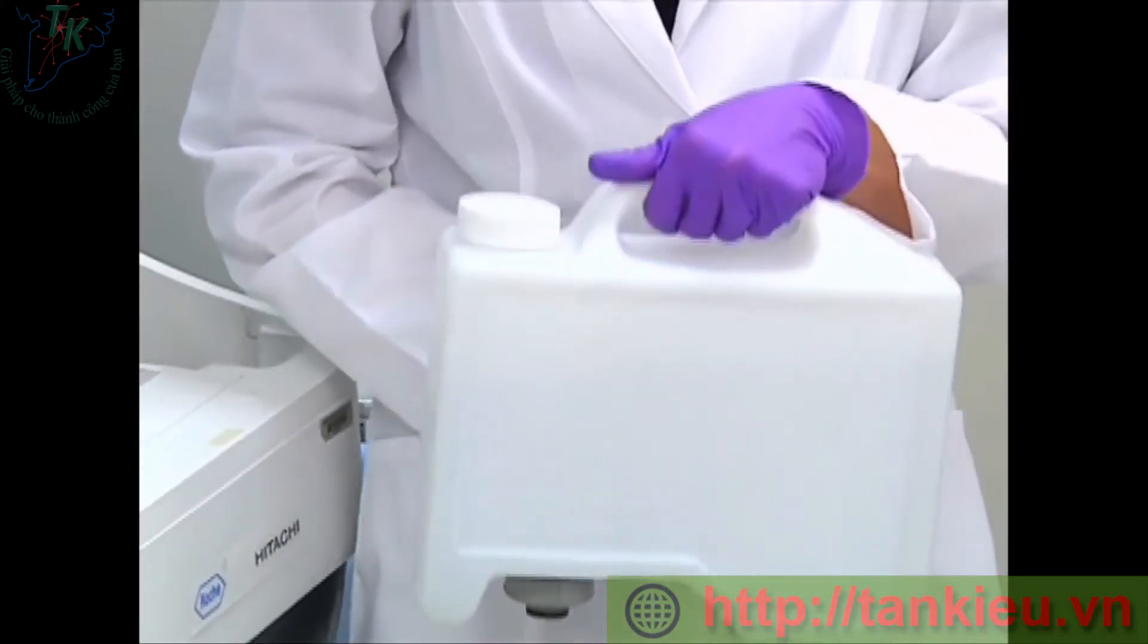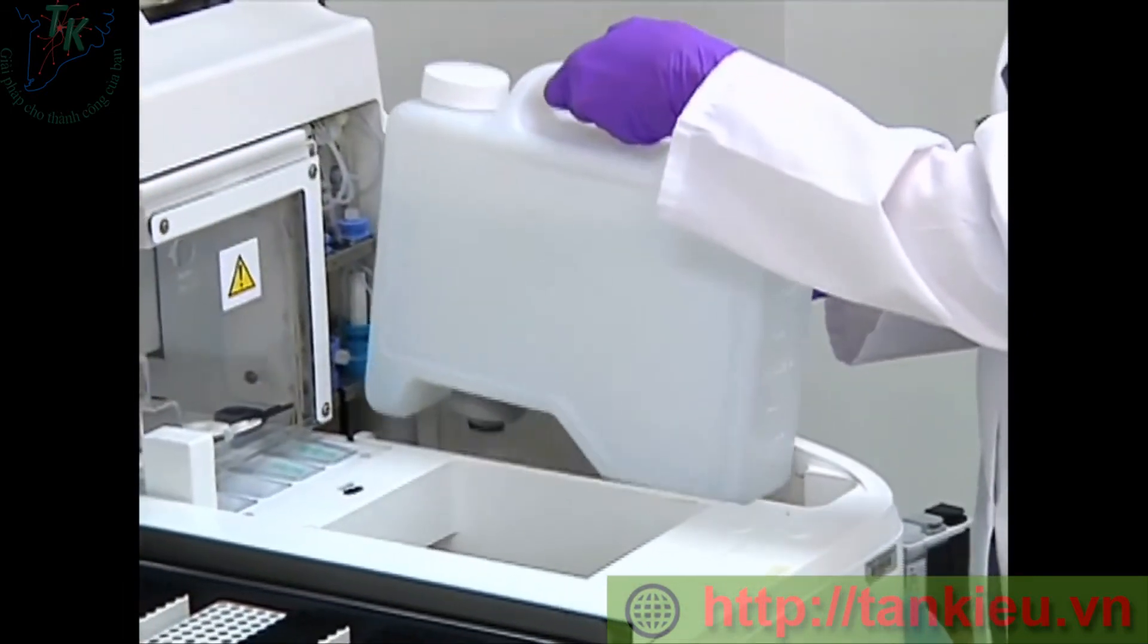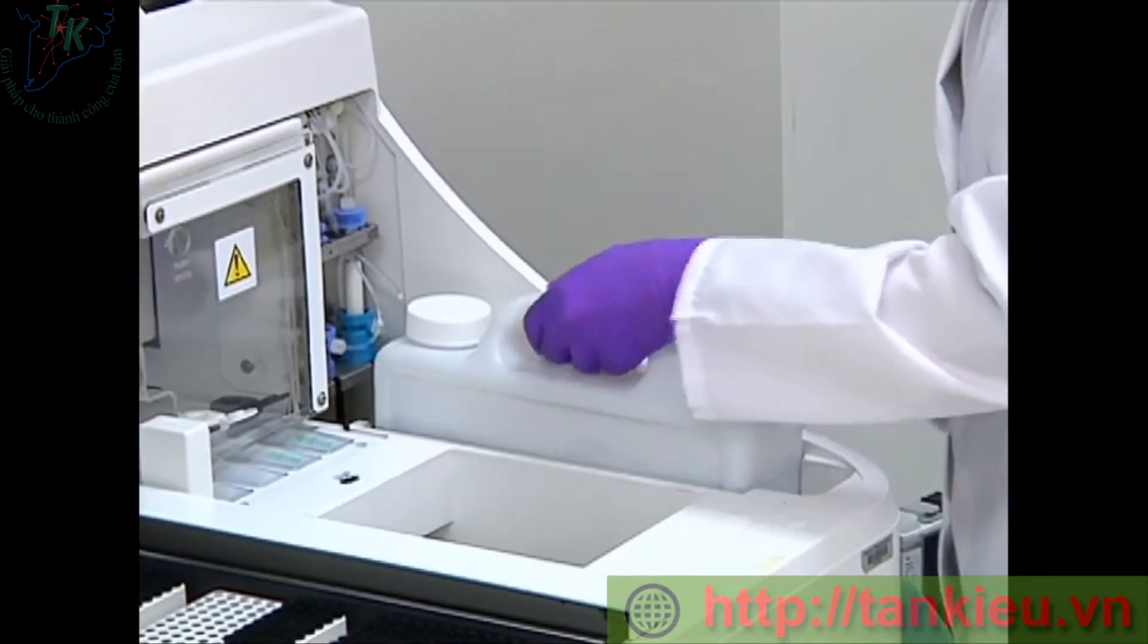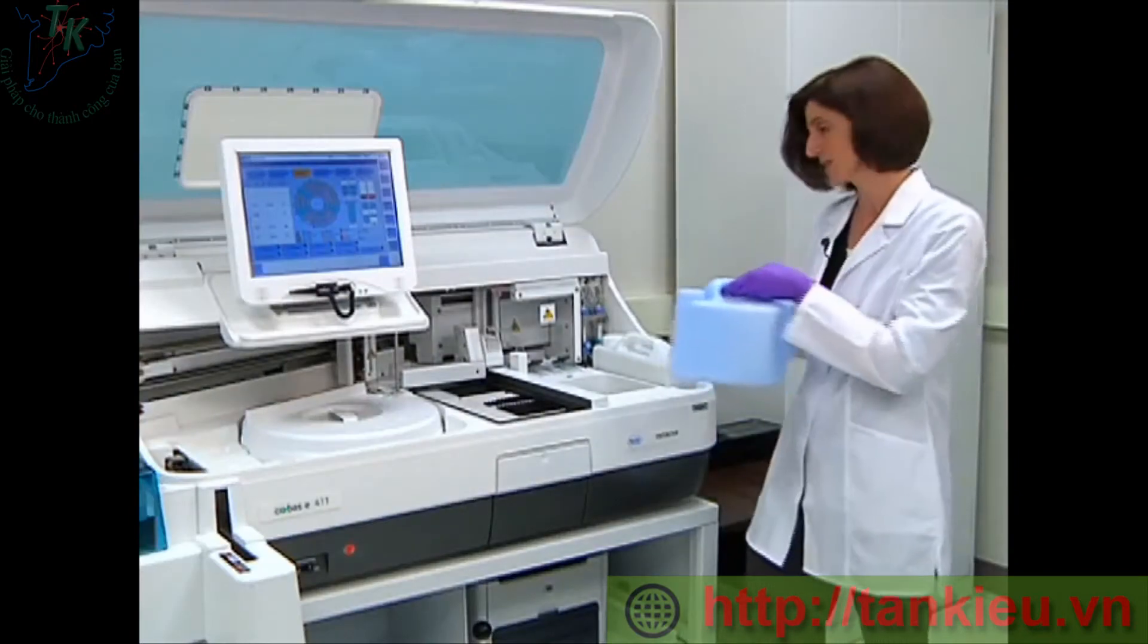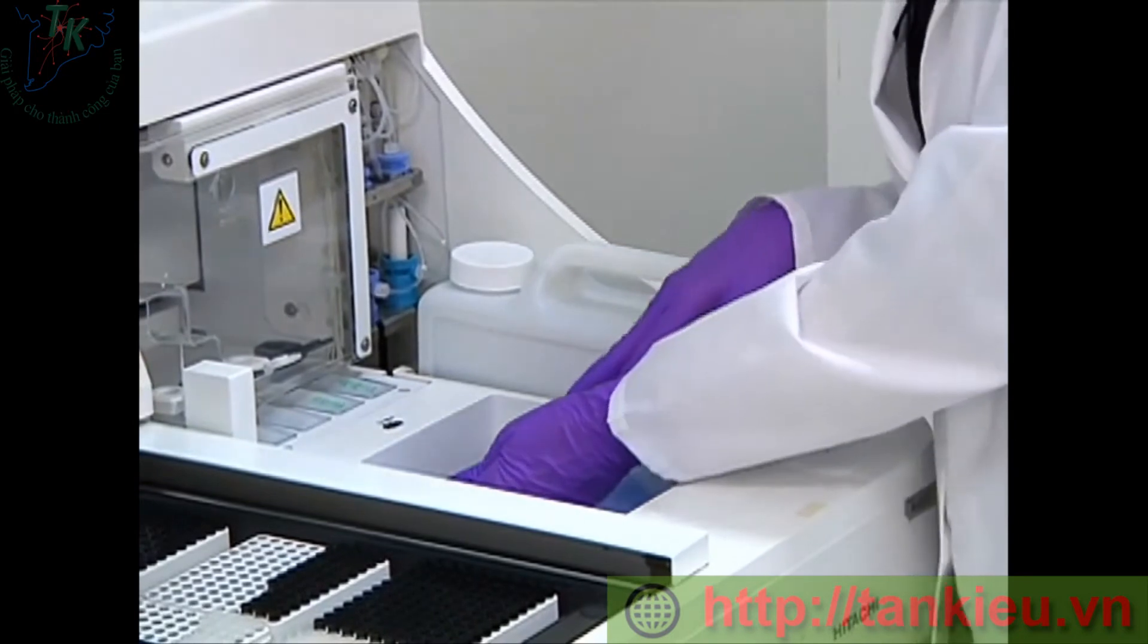So now I have my system water filled to the 3-liter mark, so I'm going to return it to the analyzer. And I have emptied my liquid waste, so I will load it also back into the analyzer and then slide it back.